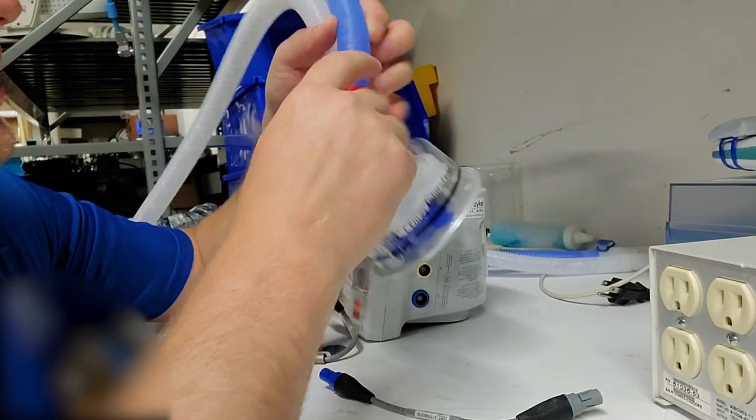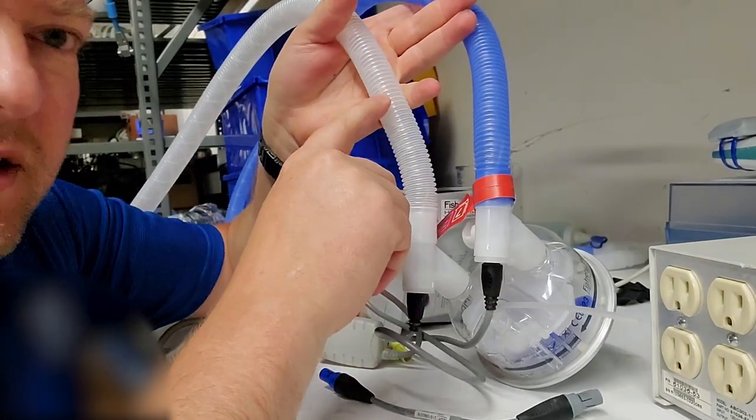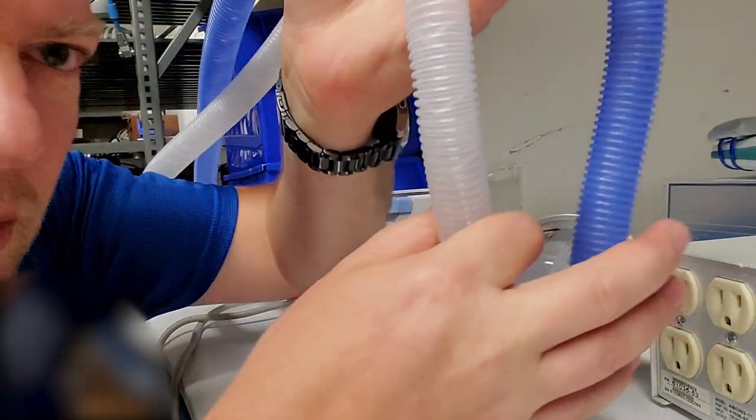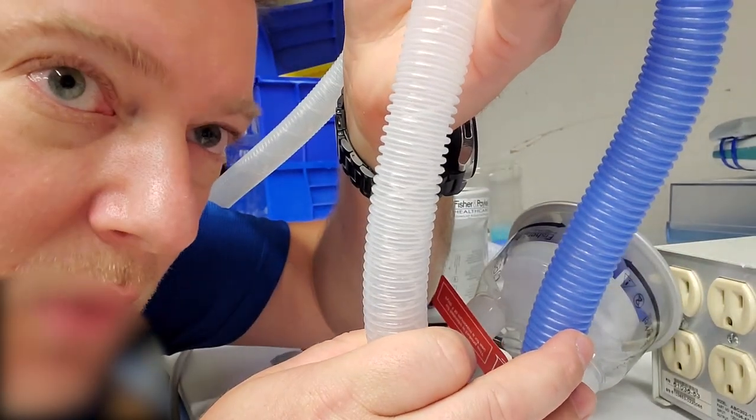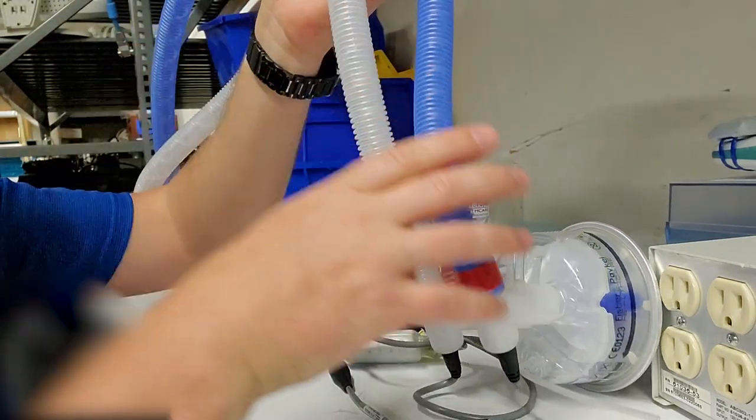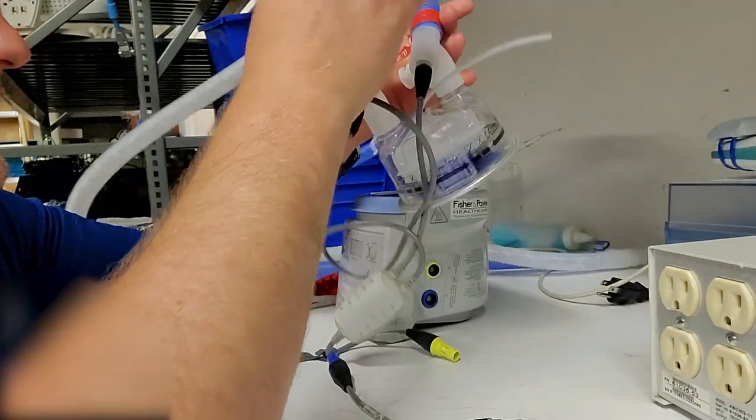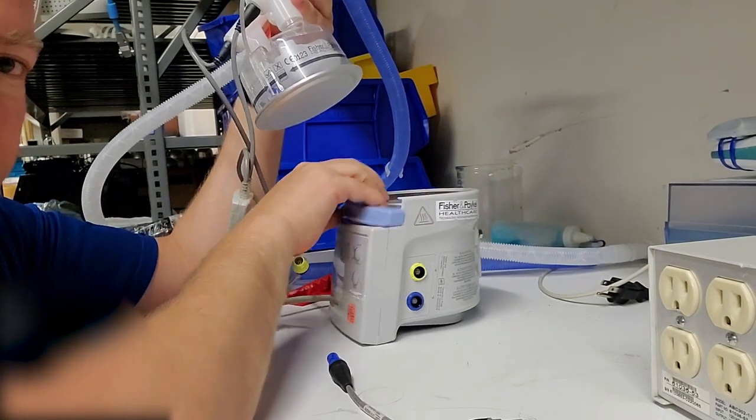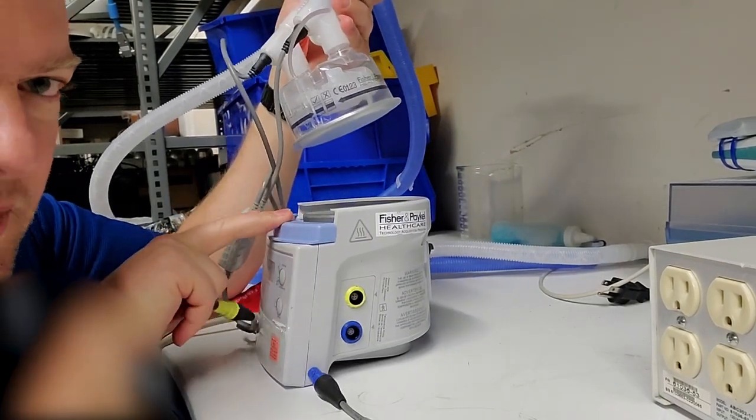The heater is actually a filament that goes up inside the tubing. It's really difficult to show on camera—you can kind of see the coil right there. So it goes up and inside, heating the air up here and heating it here with this platter. See that metal platter?